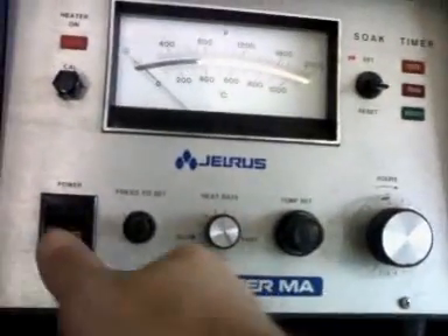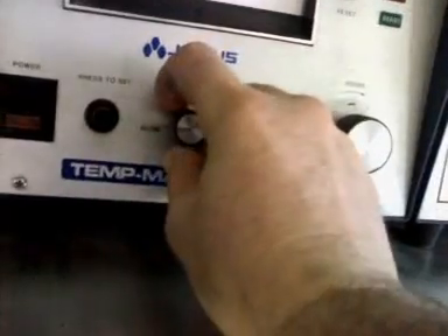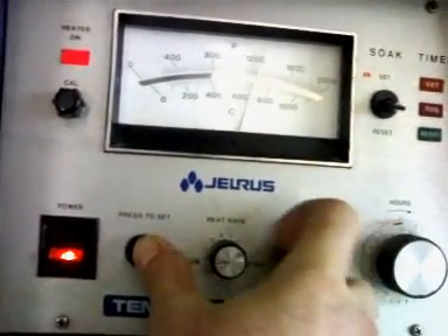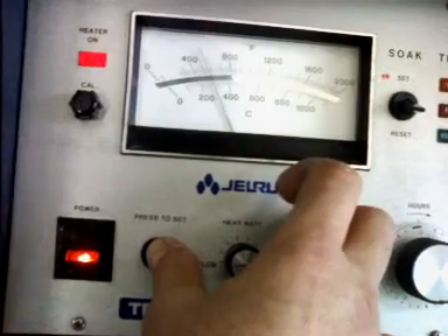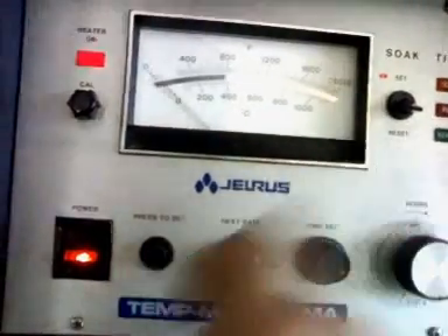Of course it's not going to be at its melting point. I use a three-stage process when I'm doing this kind of job. We're going to bring it to 320 degrees. We're going to check it again.